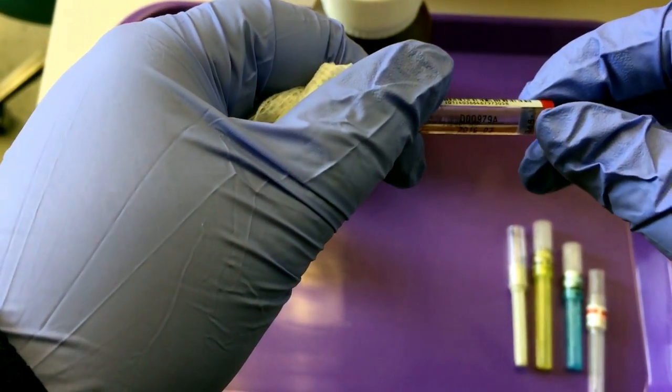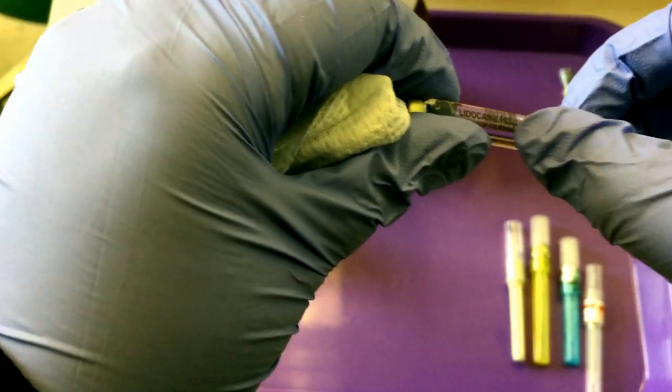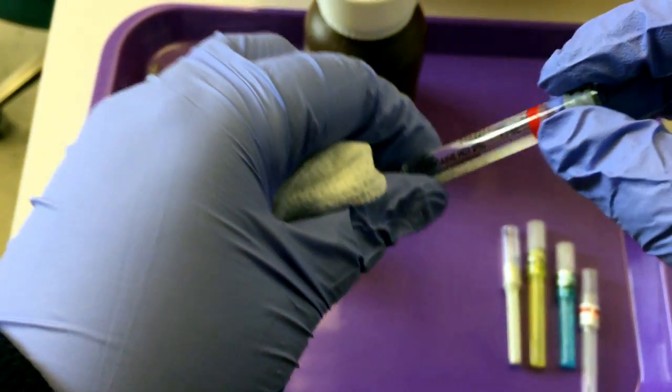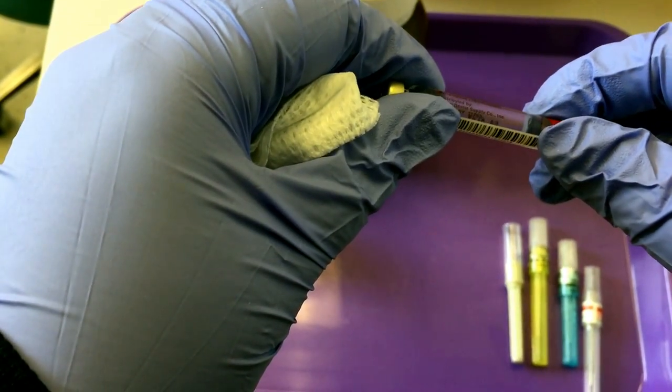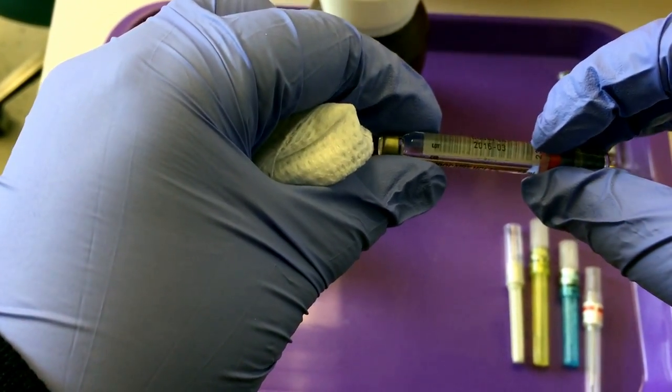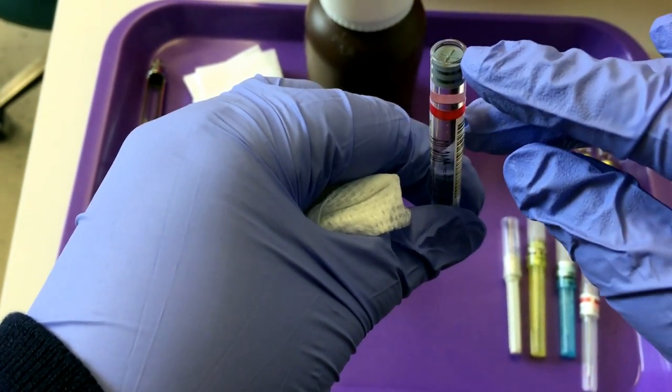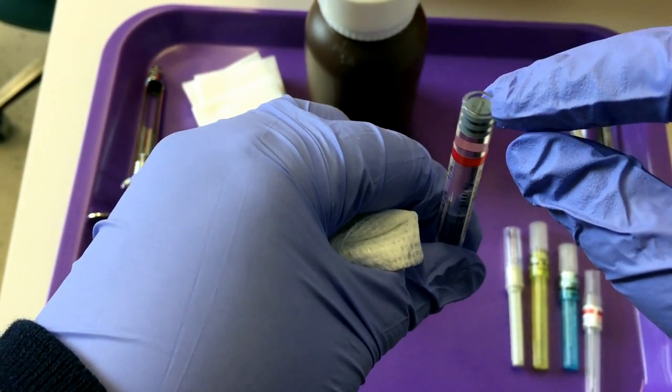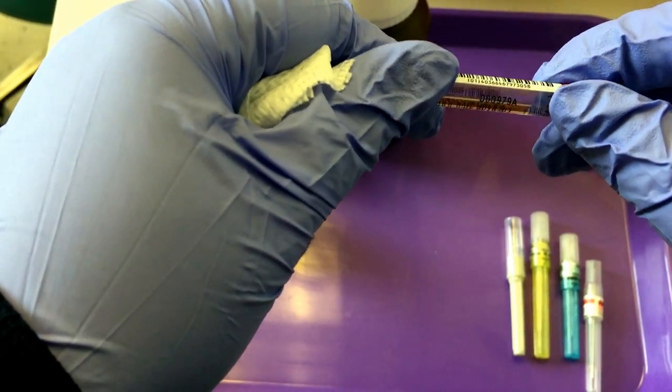While you are looking at your carpules, you want to check for any cracks, any discoloration, any bubbles that might be in the solution. If you have cracks, discoloration, bubbles, or the stopper is pushed out, you don't want to use that carpule, or of course if it's expired.